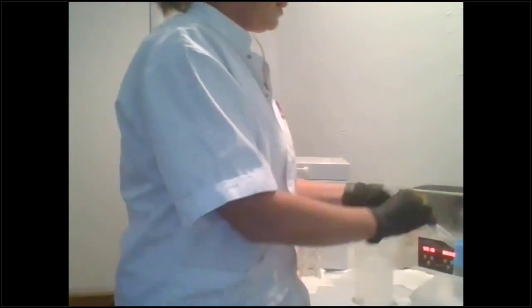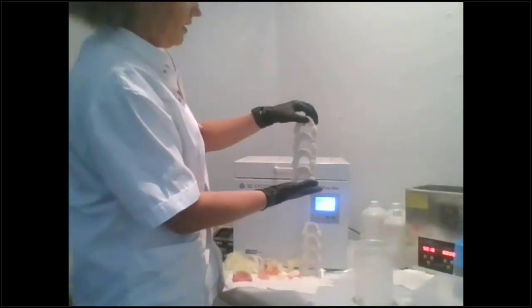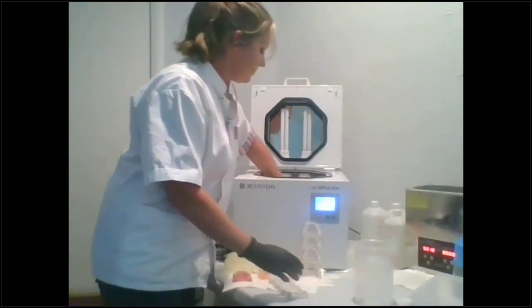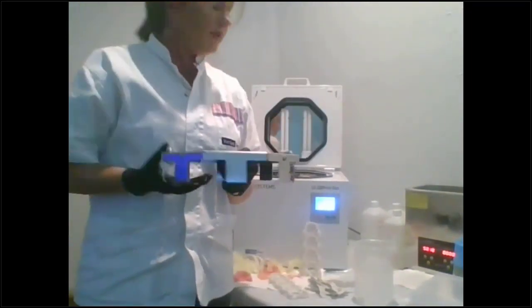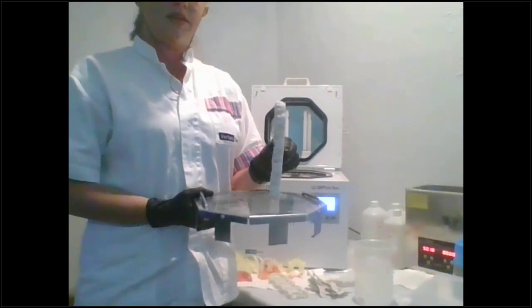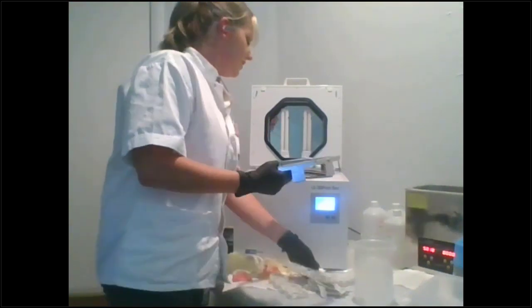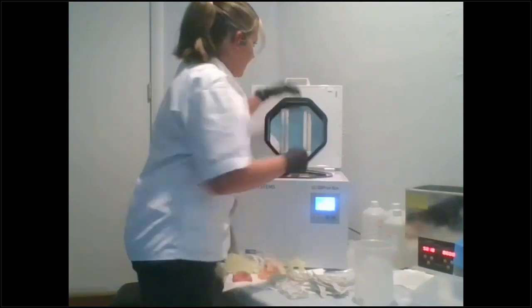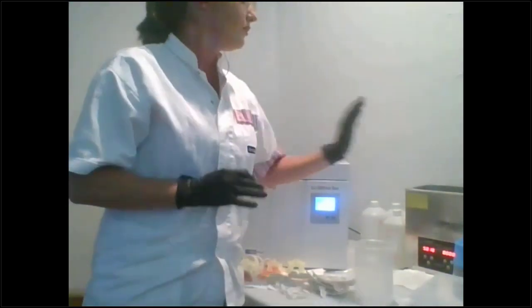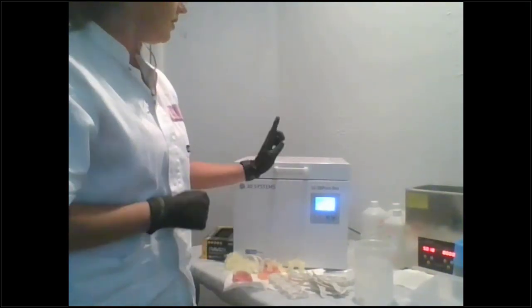I would use that. So once you're done with that, just dry it off. Obviously, you'll pull those off. And I just set mine in my cure oven on the base here. I have some ear protectors in here right now. In the cure oven, it actually has a table, and so you'll just set all of your stacks on it. I think you can fit 14 stacks in here. And when you're done curing, it takes 10 minutes. So you're looking at about 15 minutes before you're ready to start thermoforming. Well, it'll be about 20: 5 minutes for your cleaning, and then air dry them, and then you'll put them in.